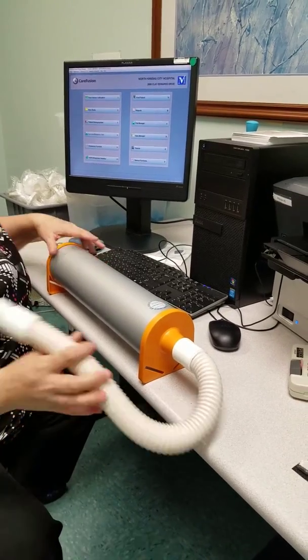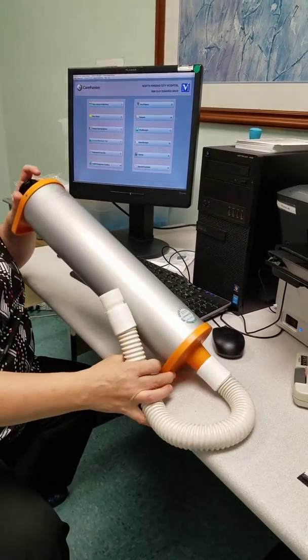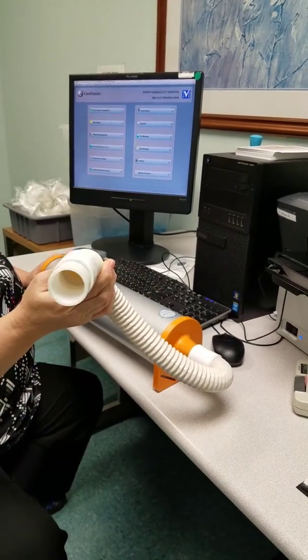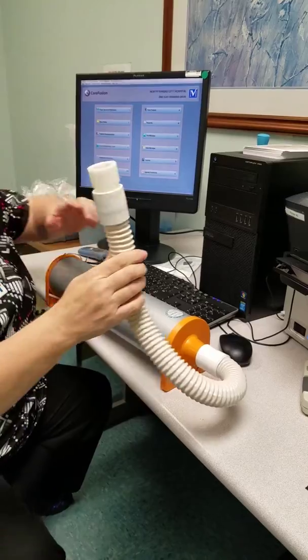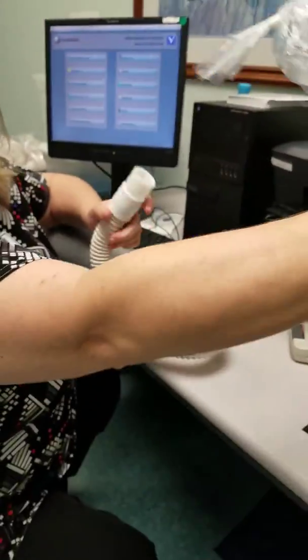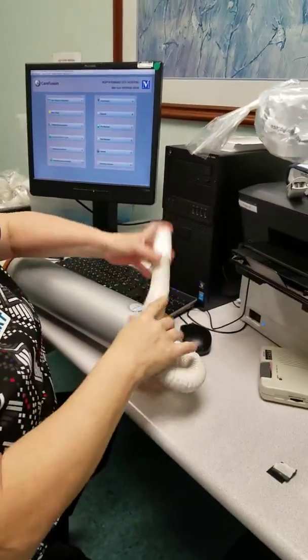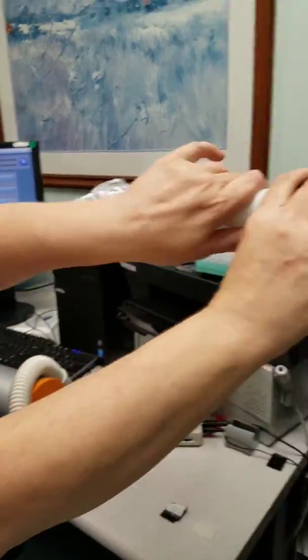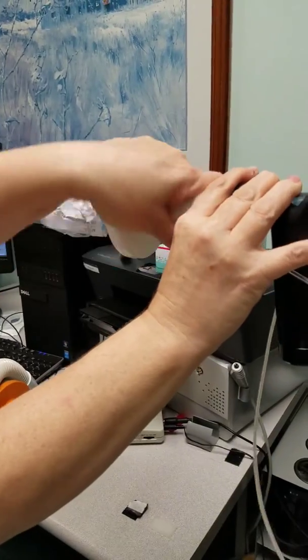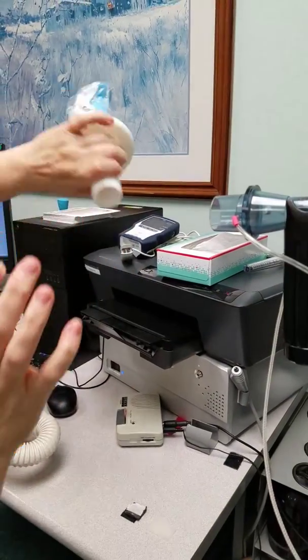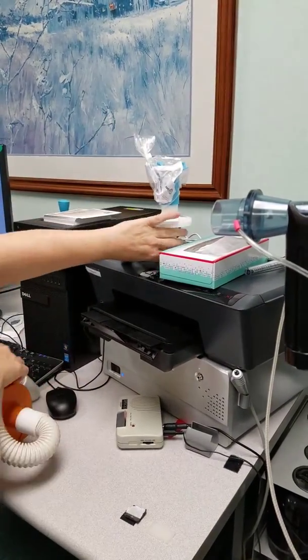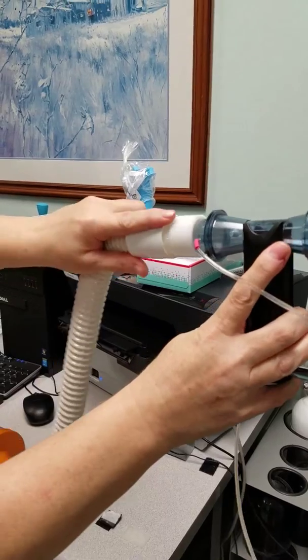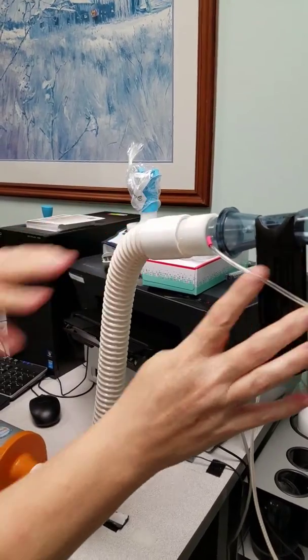First thing you're going to need is your 3 liter calibrating syringe. The adapter on the end looks like this. When you get your transducer here pull everything off of it including the white adapter on the end so that this can fit tight and without leaks.